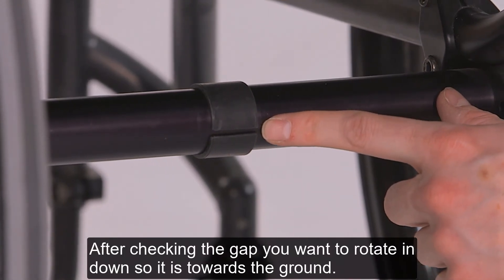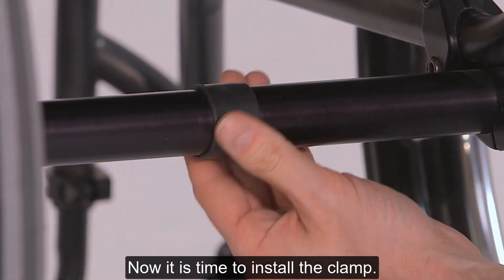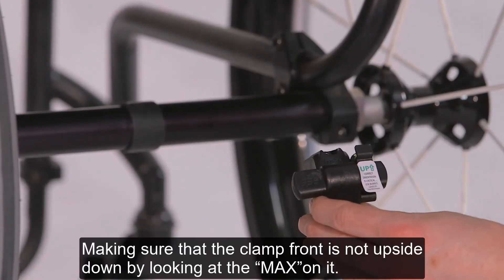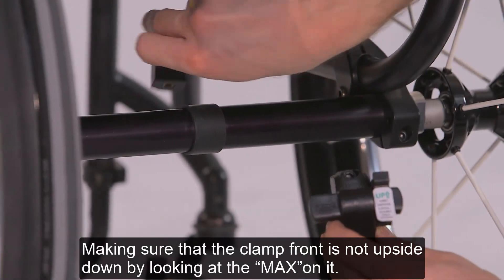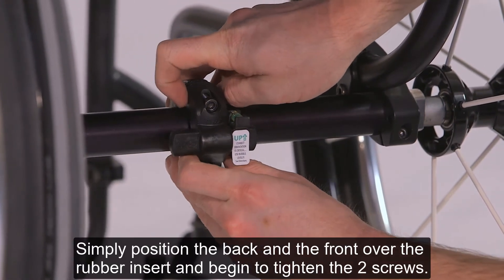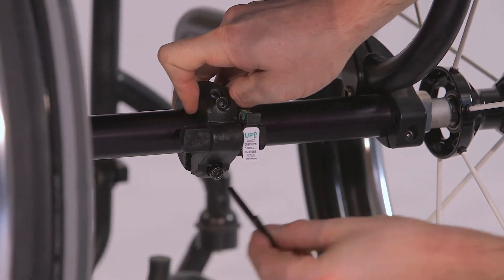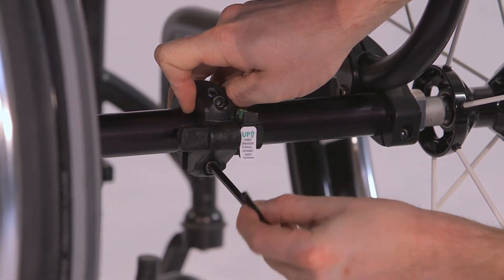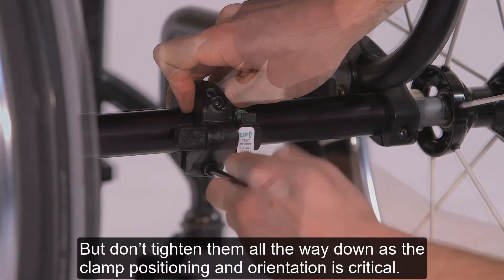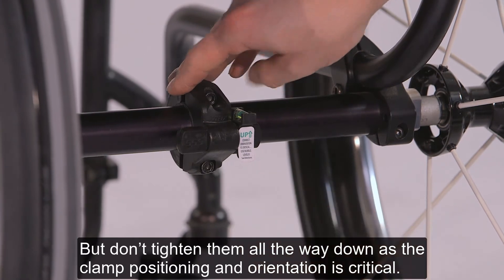After checking the gap, you'll want to rotate it down so it's toward the ground. Now it's time to install the clamp. Making sure the clamp front isn't upside down by looking at the MAX marking on it, simply position the back and the front over the rubber insert and begin to tighten the two screws. But don't tighten them all the way down, as the clamp position and orientation are critical.